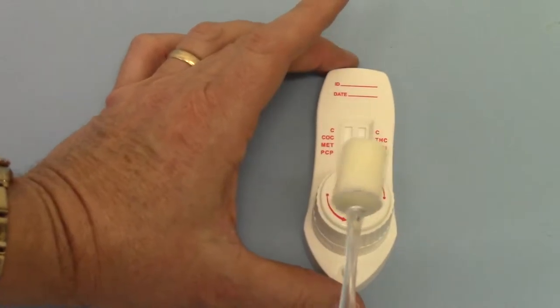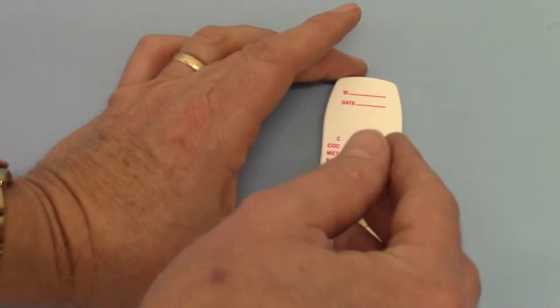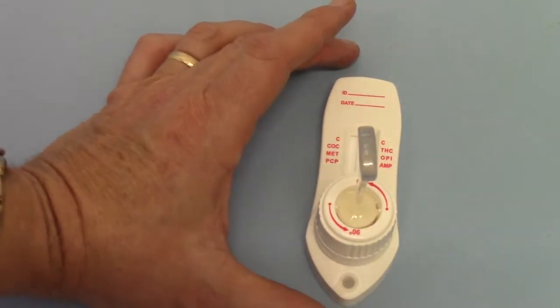it's a matter of discharging the saliva from the swab into the body of the test. The swab just feeds into the top here and is depressed down.